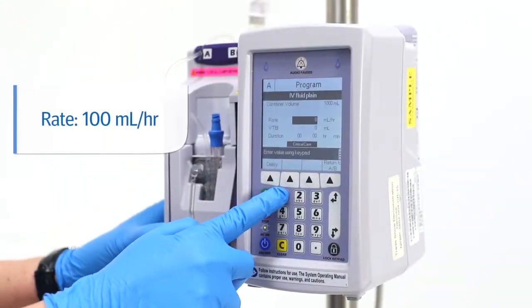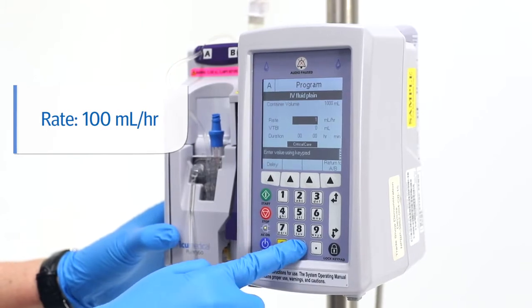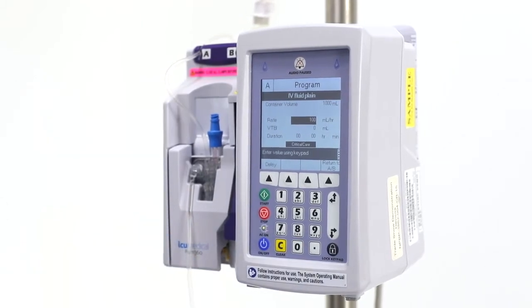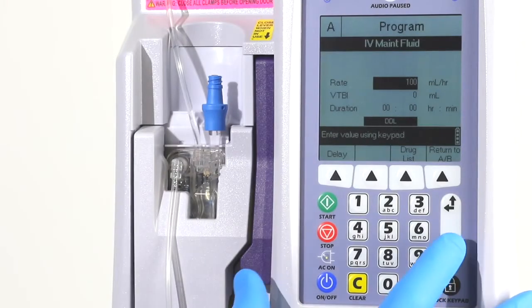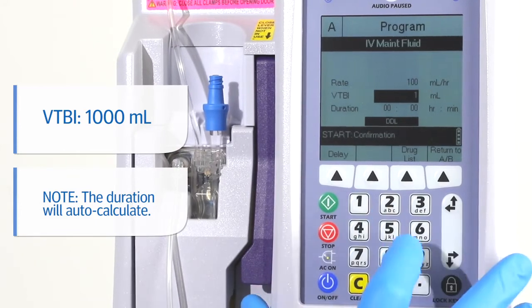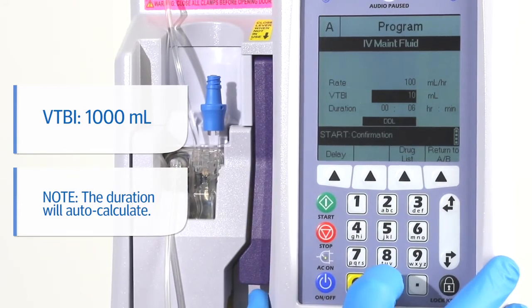Next, enter a rate of 100 milliliters per hour, then press the select down arrow and enter a volume to be infused of 1000 milliliters.